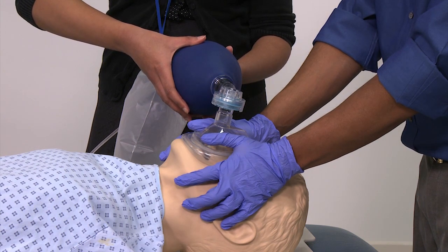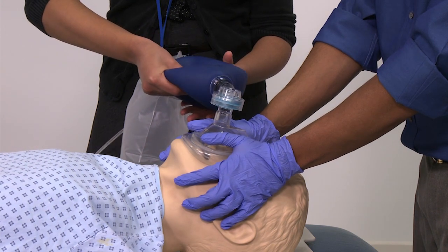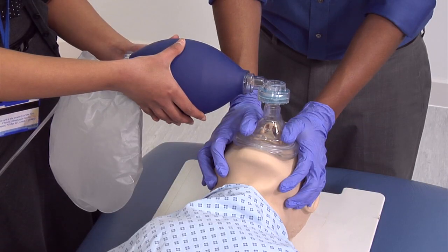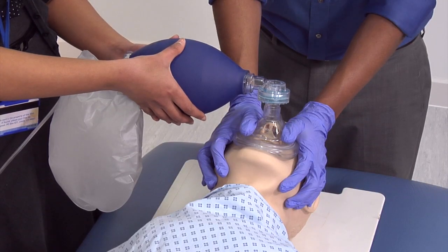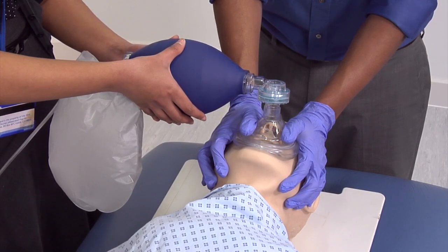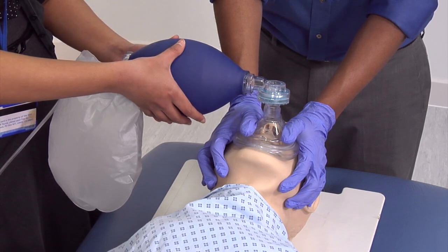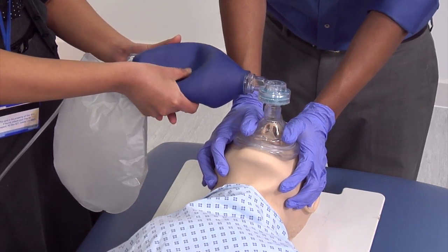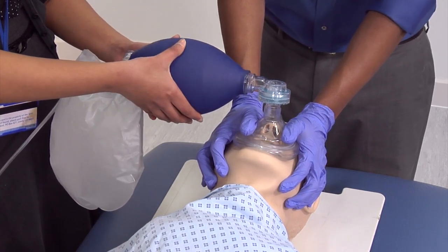The commonest reason for failure of bag valve ventilation is a poor seal between the airway and the mask. If signs of ventilation are not seen, re-evaluate the seal.